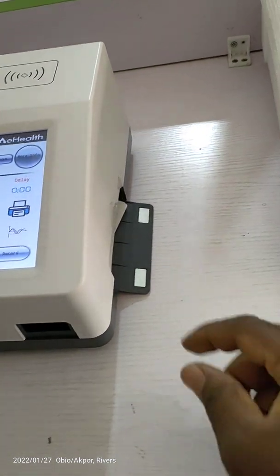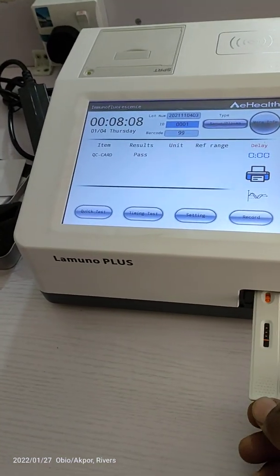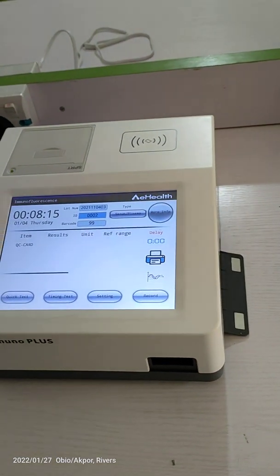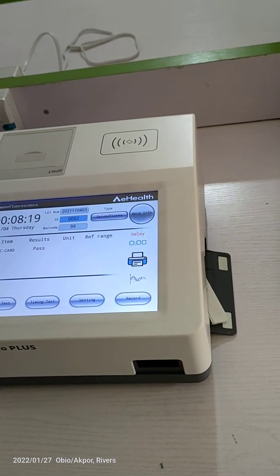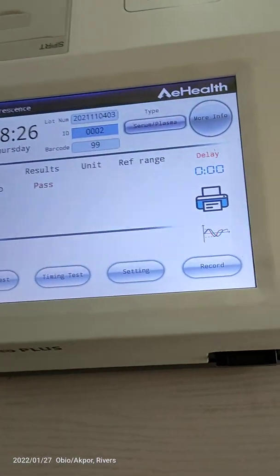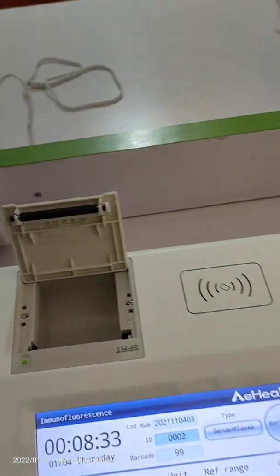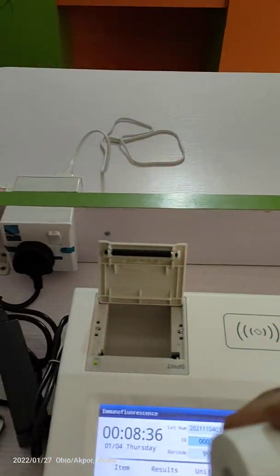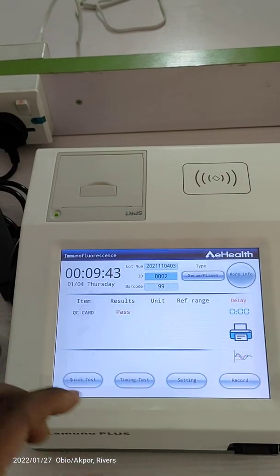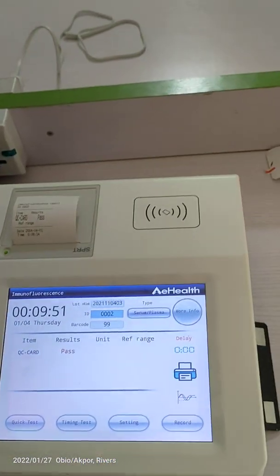For this QC we are doing quick tests. The cassette goes in, it tests — pass — and then it falls out from the waste pouch. Let's do the process again: QC quick testing, it tests, pass, and then it falls out. Very good. So this is the first level QC test. There was no paper loaded, so we are going to install the paper for the printer now. Paper installed — QC pass. This is the first level of QC.